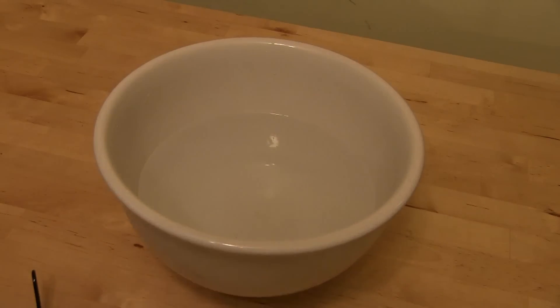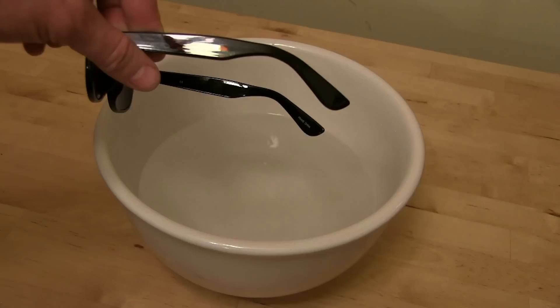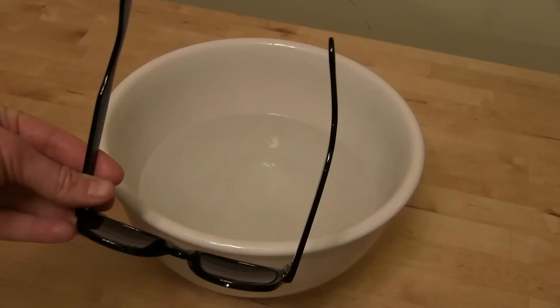Here's how to bend and reshape plastic glasses. These are my brand new prescription $39.com glasses, and the arms are too short for my fat head. You can see this one's kind of bent too, out of the box. I think they gave me too small of a case for it.